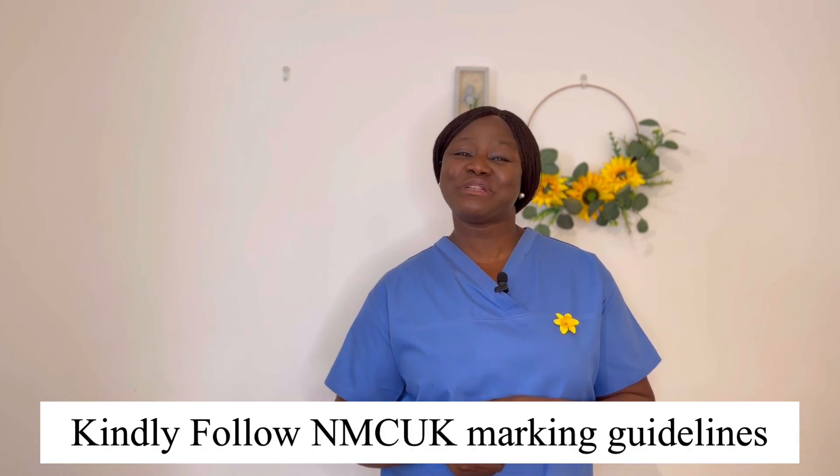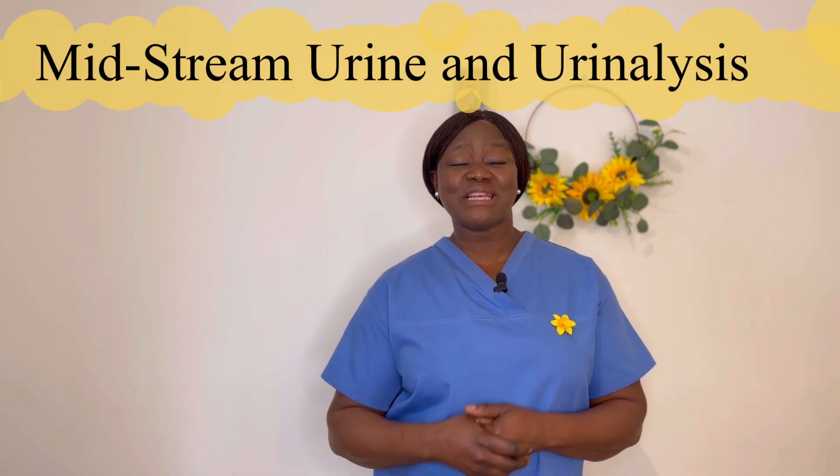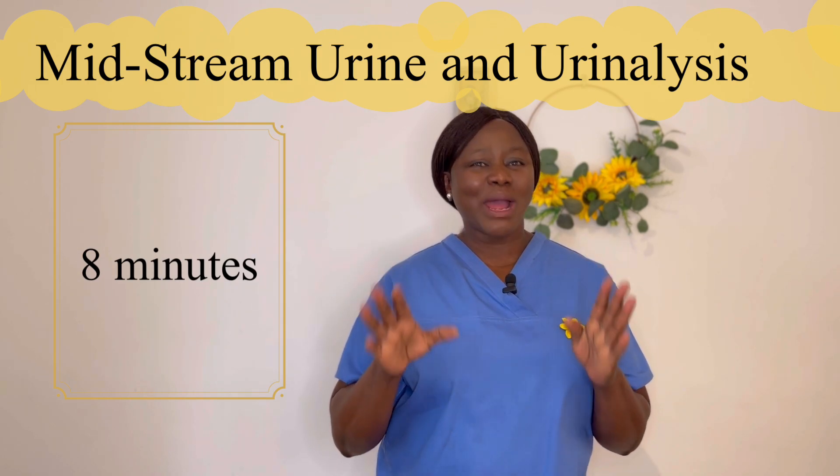In this video, we'll have a look at midstream urine sample analysis. It is eight minutes allotted time. One advice: you can't just read midstream urine analysis — except it's something you do on a day-to-day basis. Please pay the sacrifice. Try to get your hands on some multi-stix reagent, get a urine sample, put glucose in one, put albumin in a different urine sample, and practice with that over and over again. That's the secret with midstream. You have to practice it and make sure you are ready before you go for your exam.